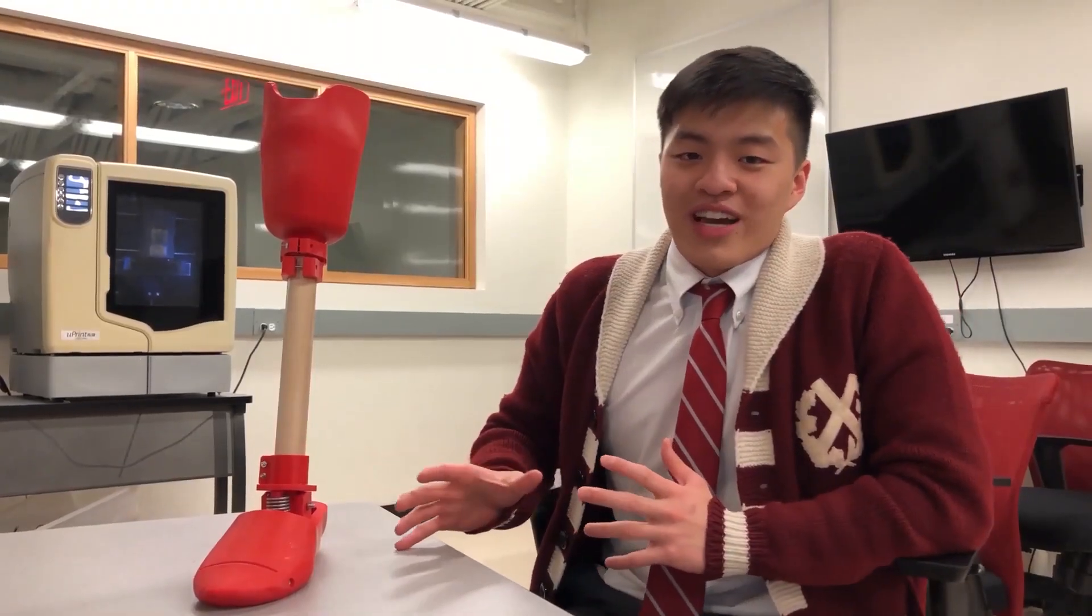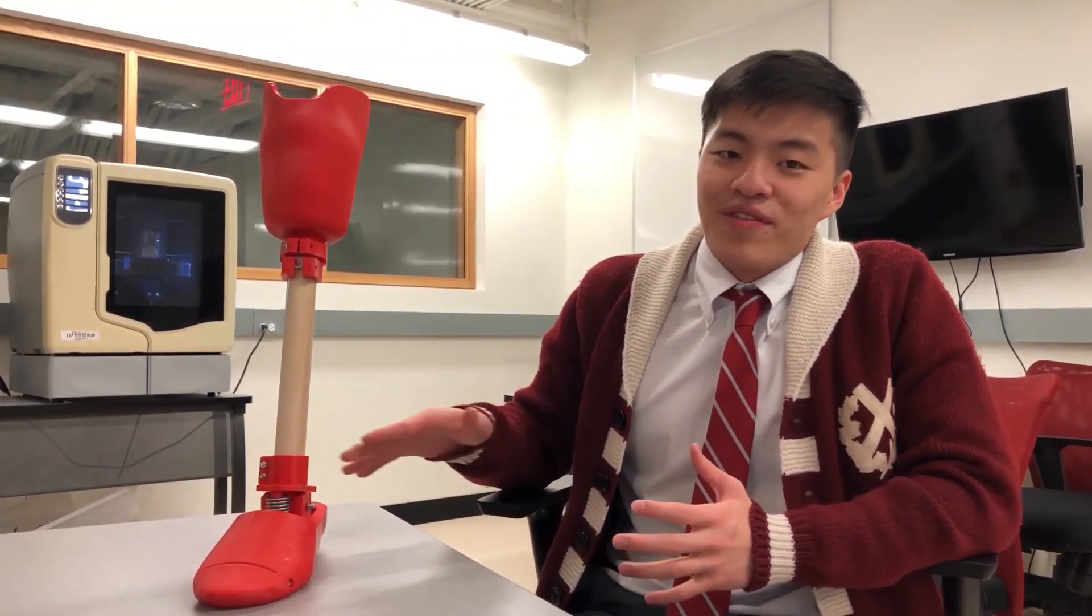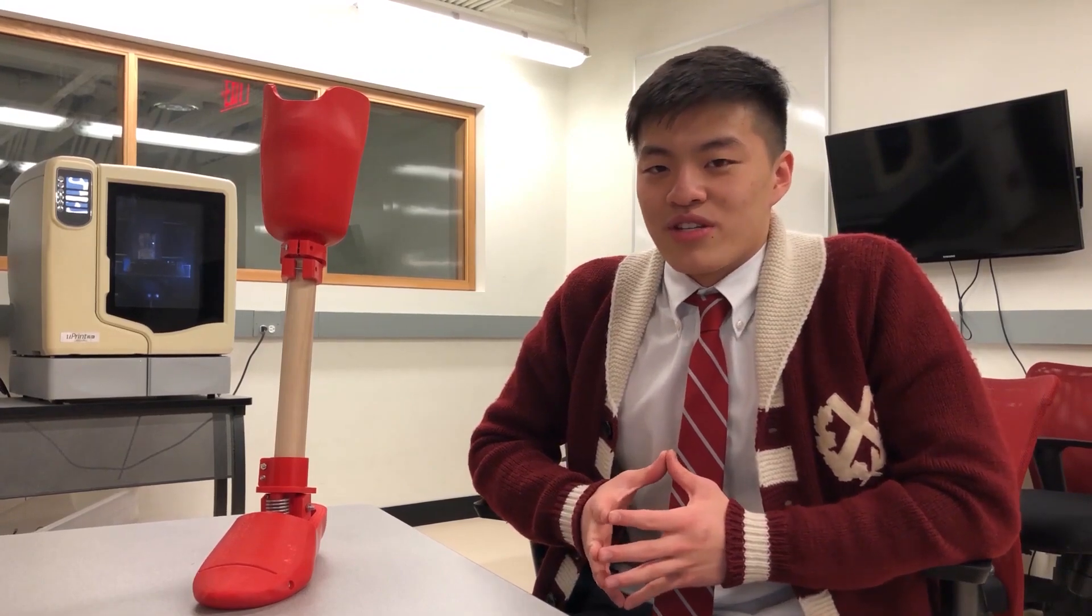This prosthetic uses a combination of spring and lever action to restore mobility to its user.